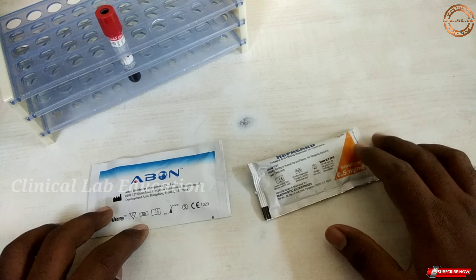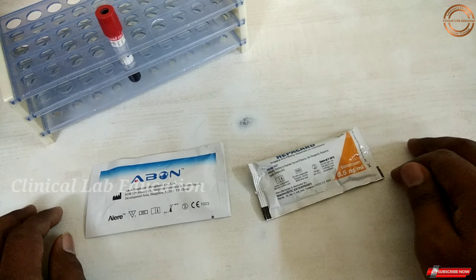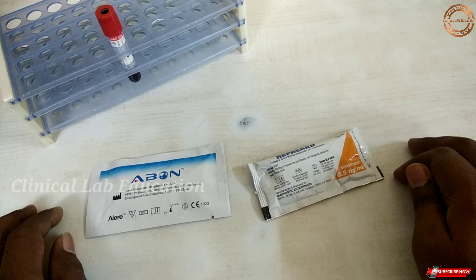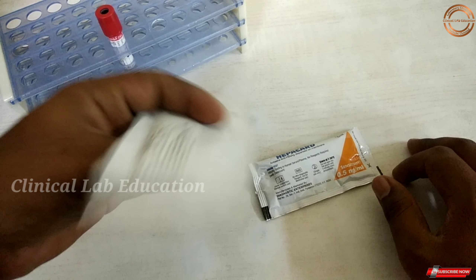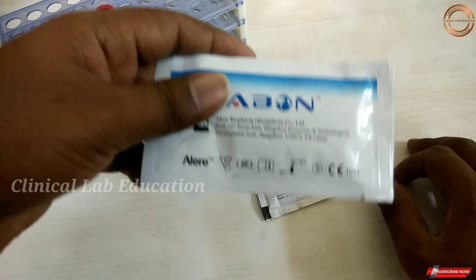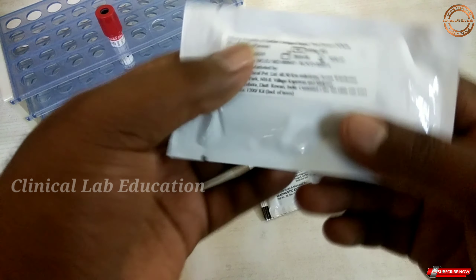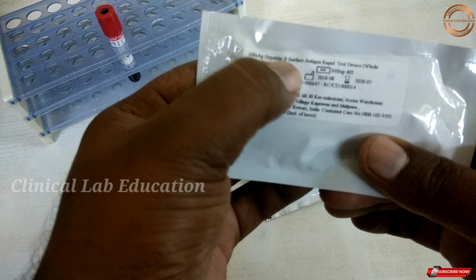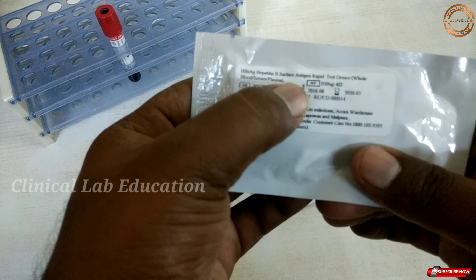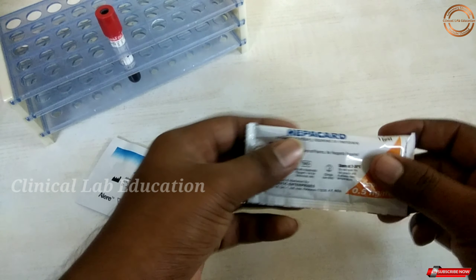Hello guys, in this video we are going to do the HBS-AG test — the Hepatitis B Surface Antigen Test.